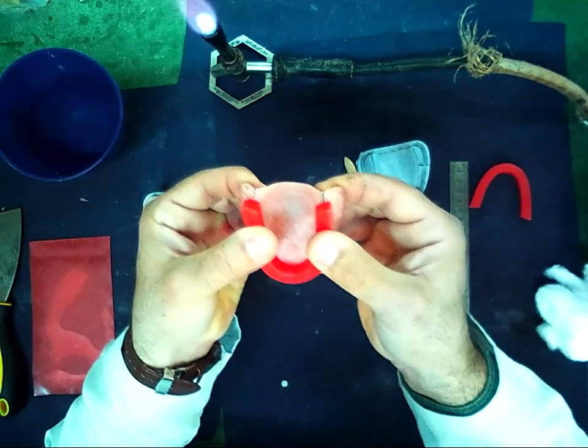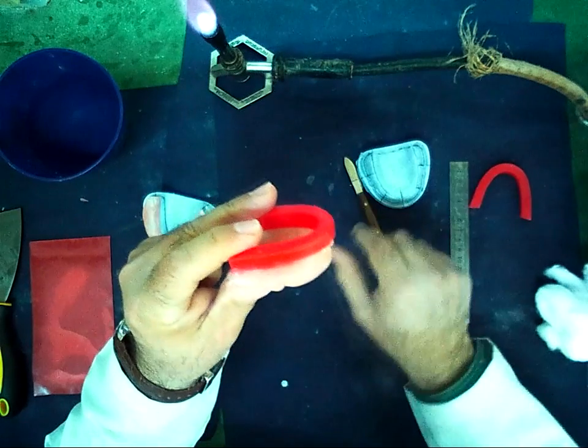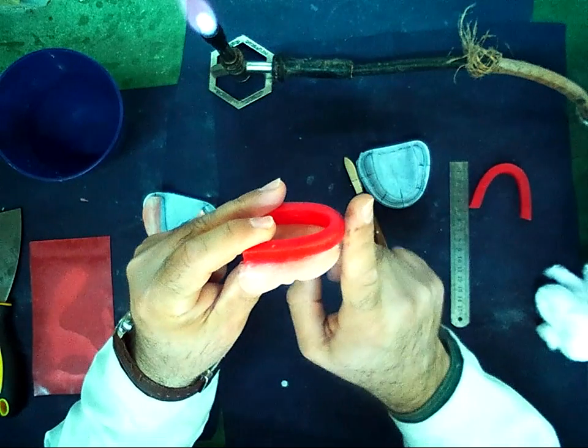My wax is on the middle of these two lines, and anteriorly it has labial incline.